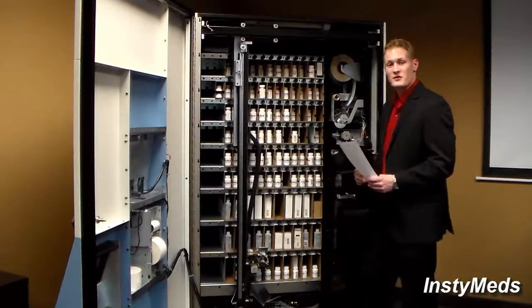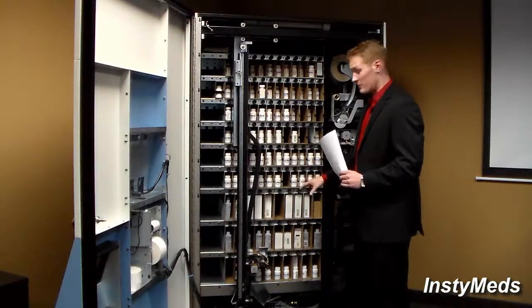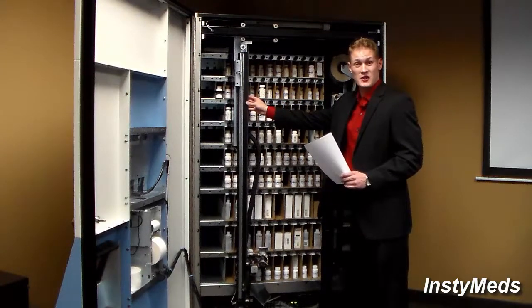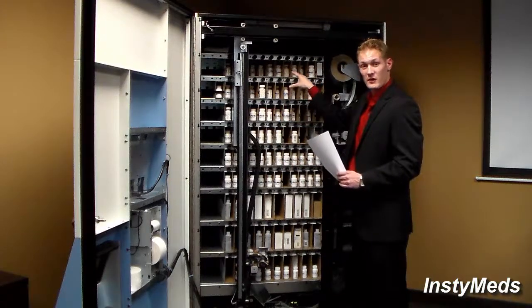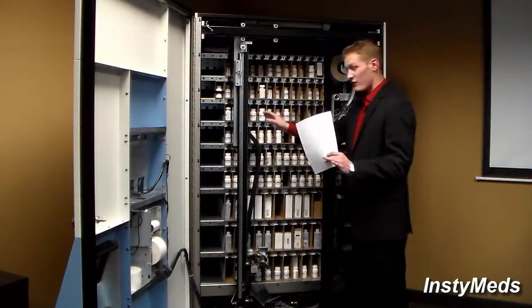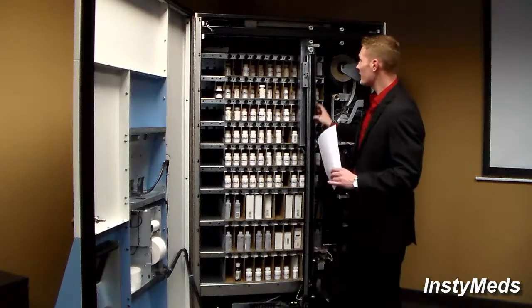So in the interior of the dispenser, there's 102 locations. 72 of them are considered short medications and 30 of them are considered tall medications. So right now I can see this big giant black thing. This is actually considered the gantry. So this is what's going to actually go to each location, whichever is designated, actually retrieve the meds. So for right now, we can actually move this. It's very friendly and it's not fragile. It will not break. So I will move this to the right-hand side.